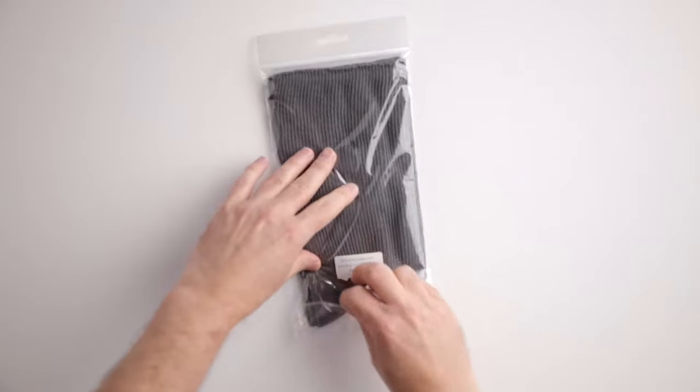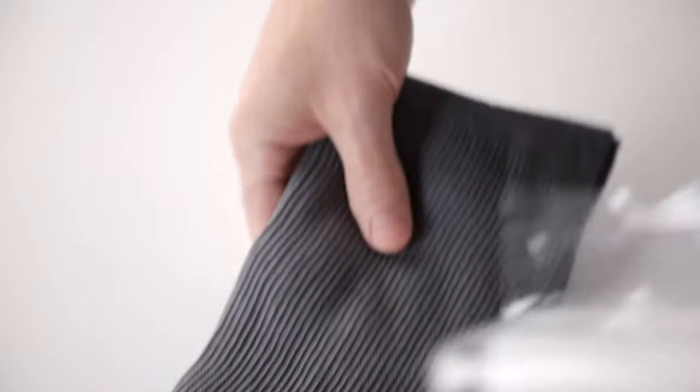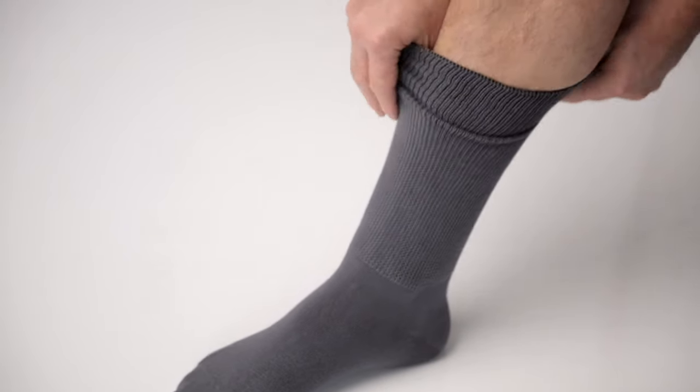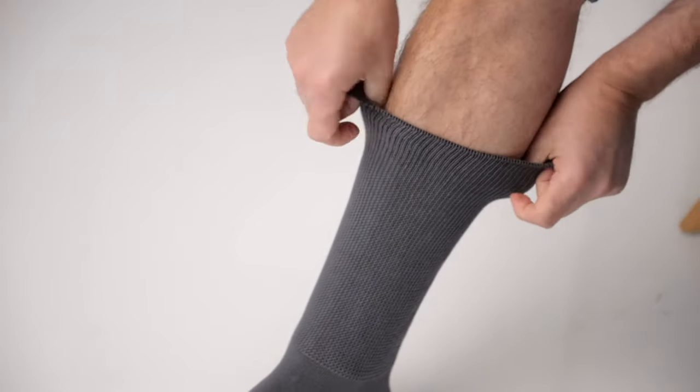They have been created for swollen feet, ankles and legs caused by conditions such as oedema, lymphedema, fluid retention and other swelling symptoms.